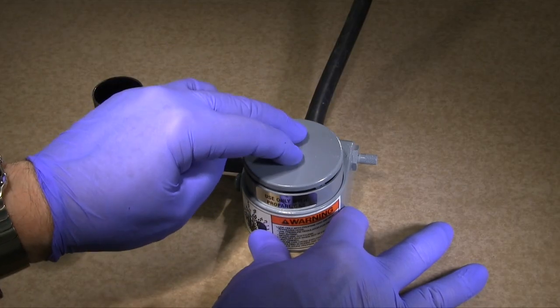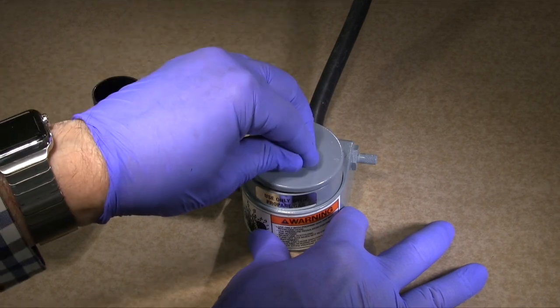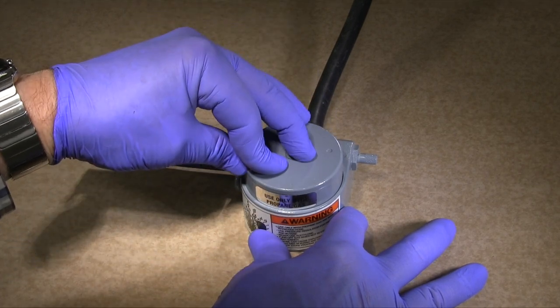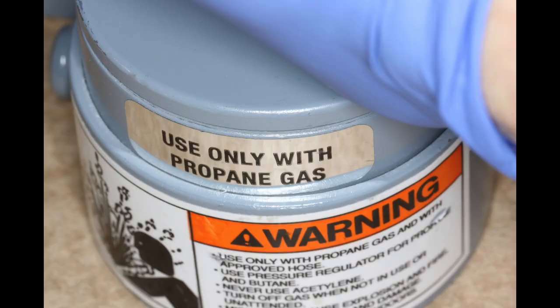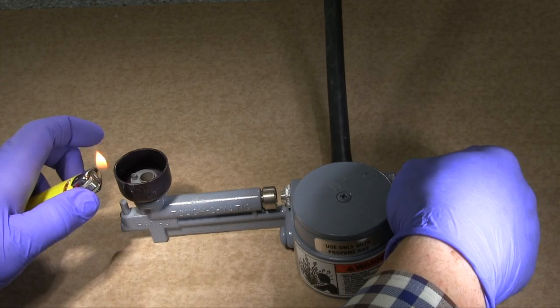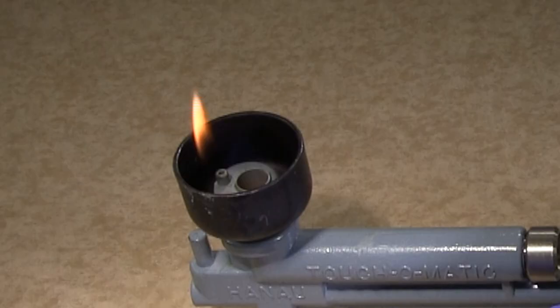Before you turn on gas with the adjustment screw on the burner, depress the on-off platform and turn the platform either way slightly until it remains in the down position. Locking the on-off platform in the down position permits the burner to operate with a continuous flame. To light the burner, turn the gas adjustment screw counter-clockwise.